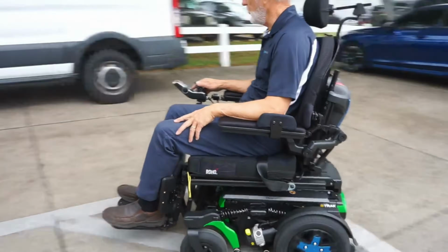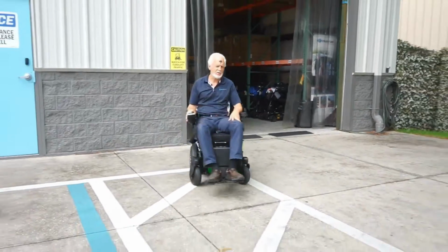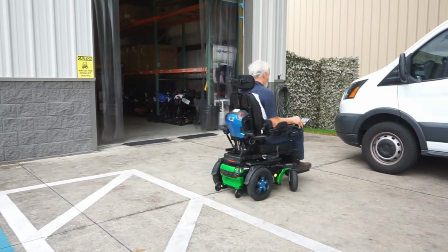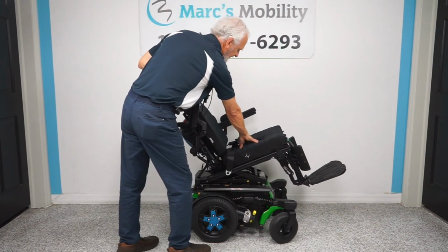The R-Track is going to be a 300-pound weight capacity unit. And this is also going to take the 75 amp batteries, but I believe also with this unit, it needs to be the flat recessed post batteries. You are not able to get the flag posts. How they're designing these chairs, they're trying to make it as compact as possible, so that extra lead on top takes up an extra inch. So you do have to get recessed post batteries, which we do sell once again, but you are not able to get the flag post batteries into the R-Track unit.